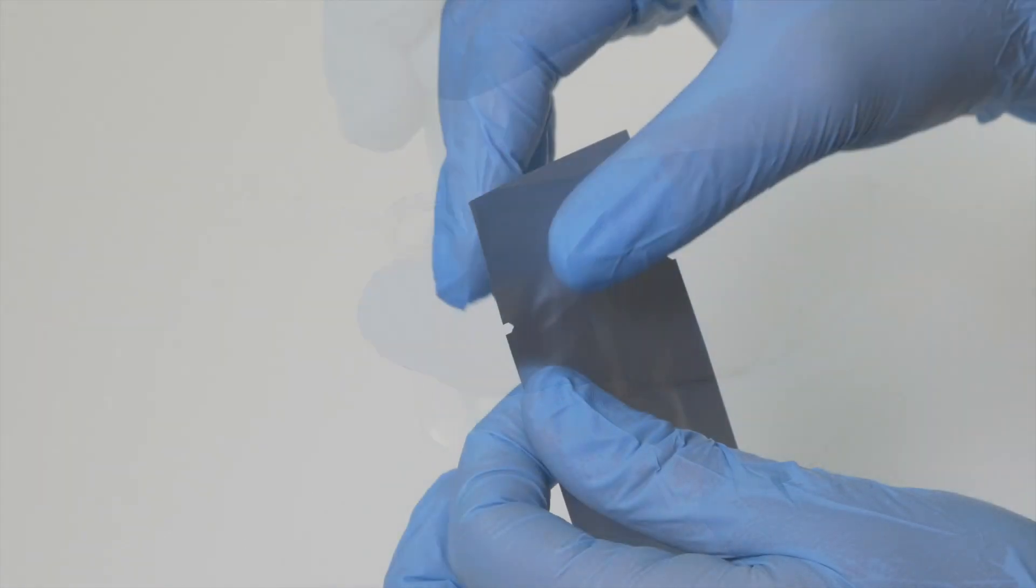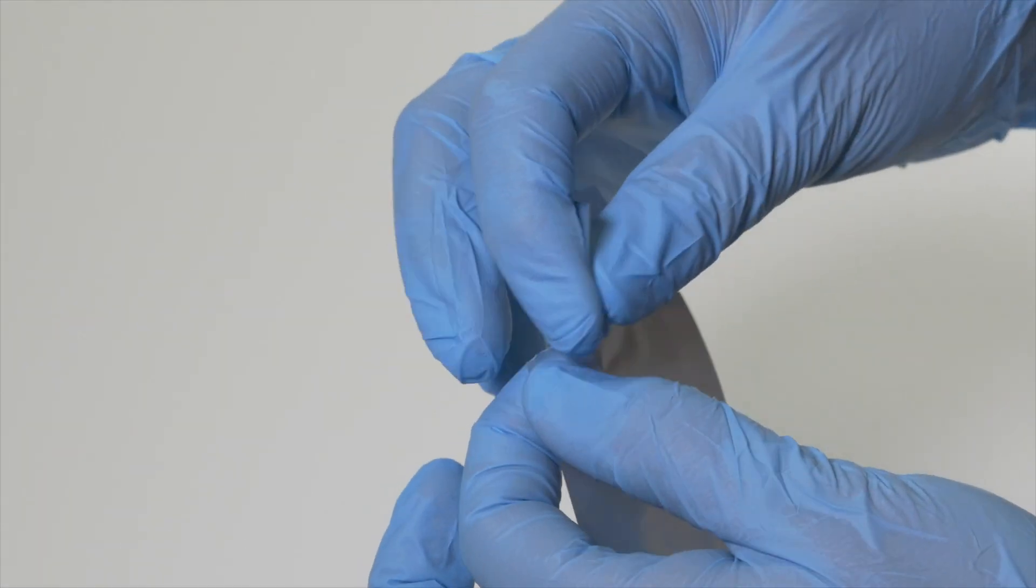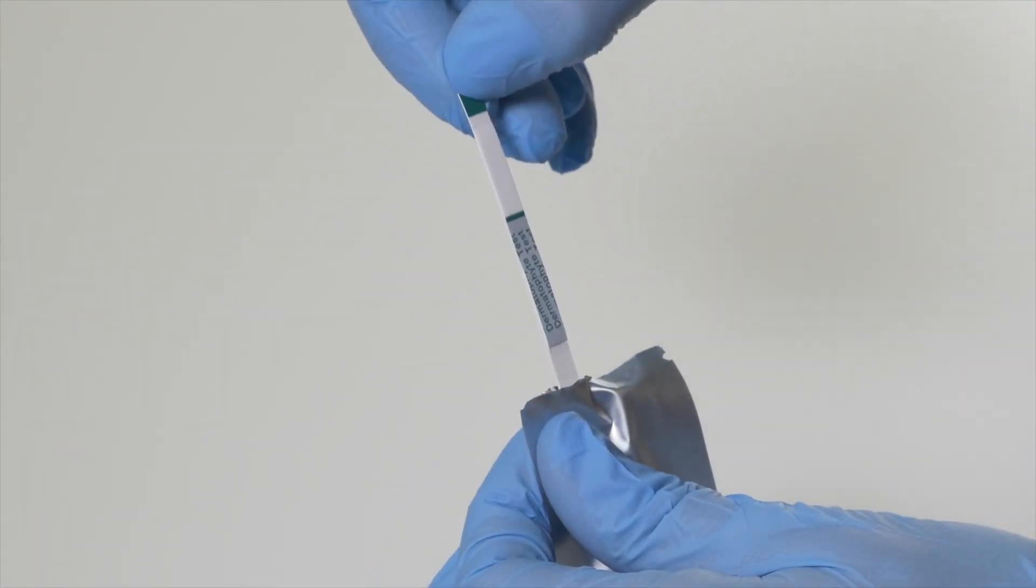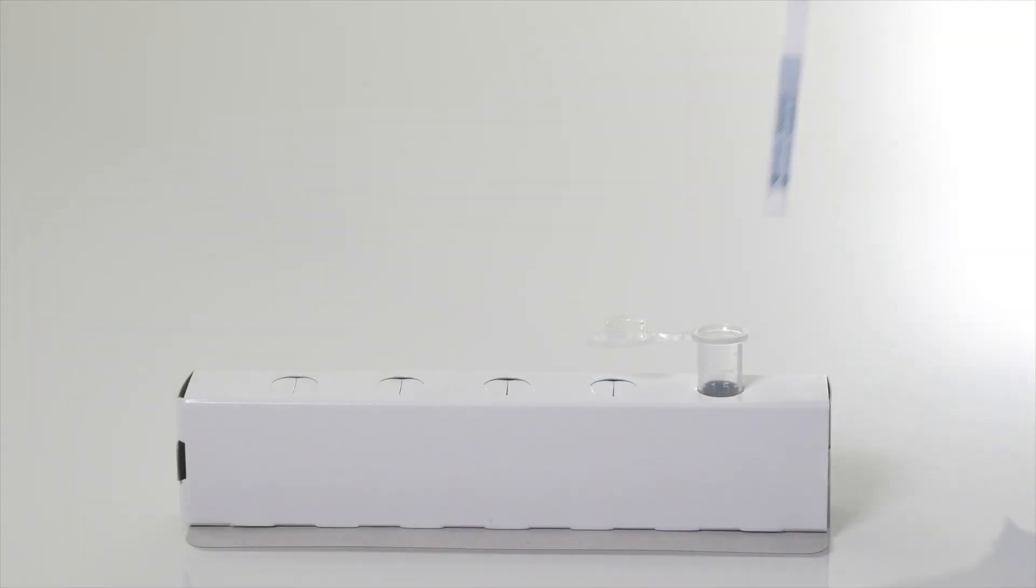The Dermatophyte test strip is then removed from its foil packaging and placed directly into the test tube.